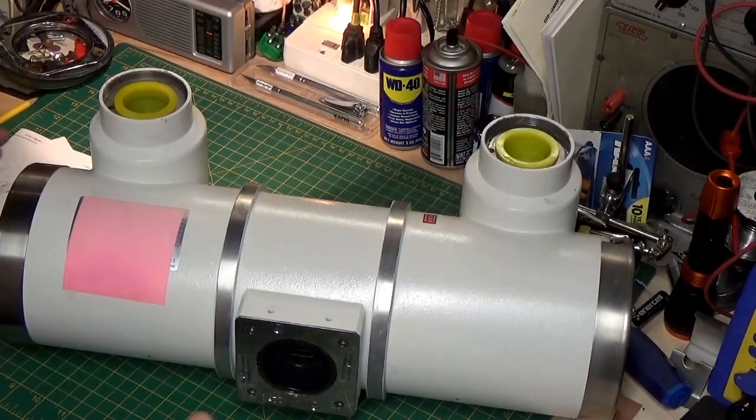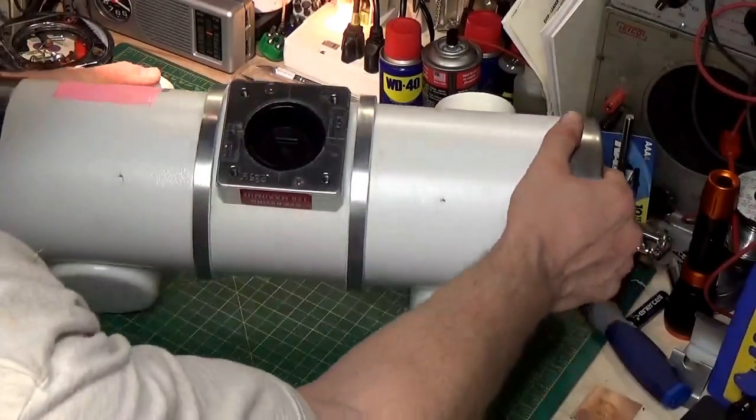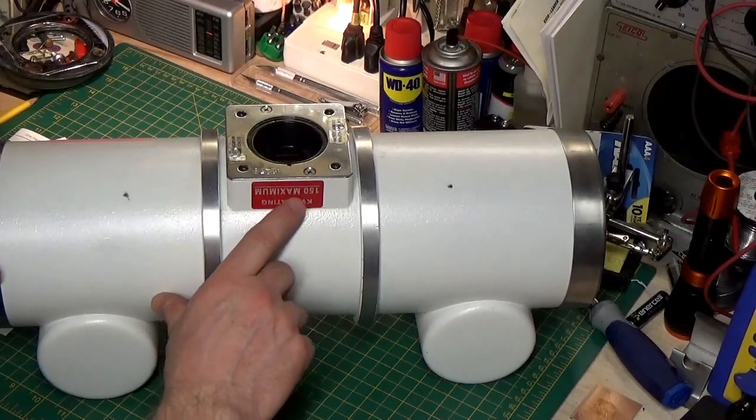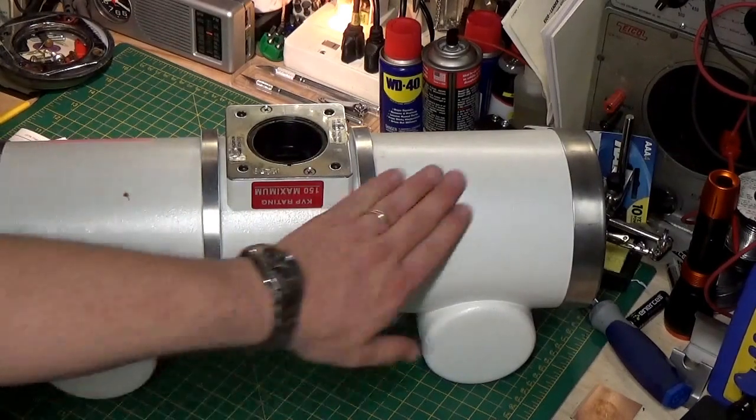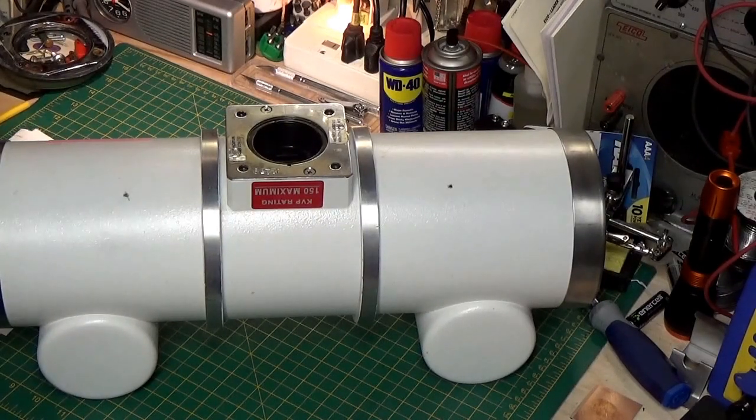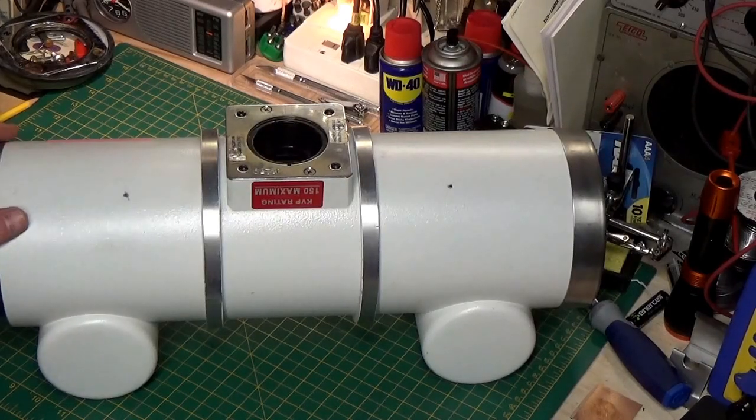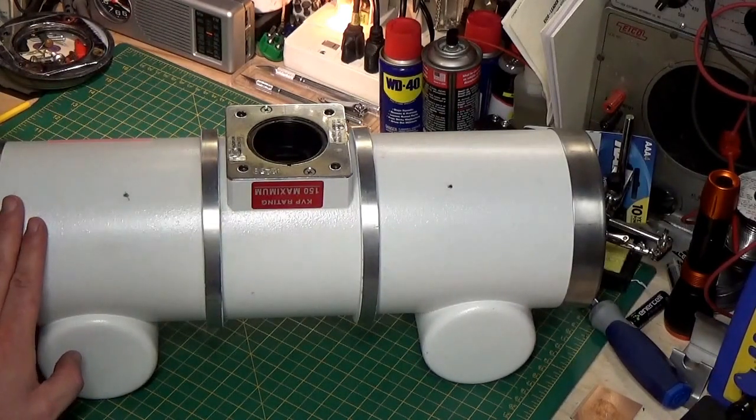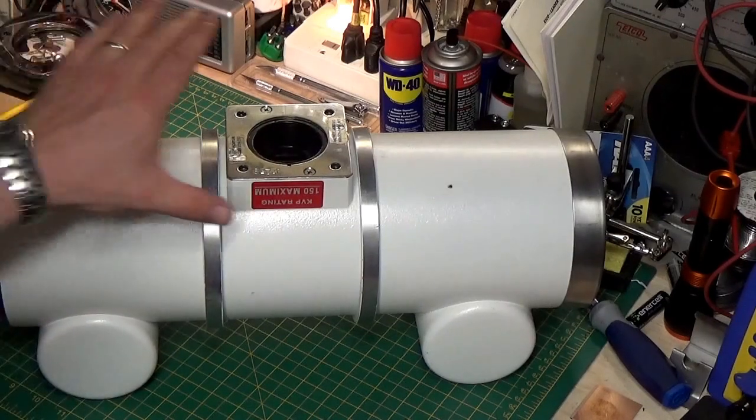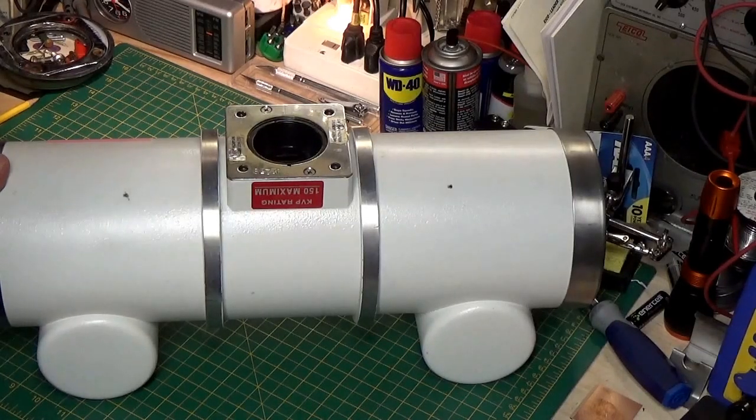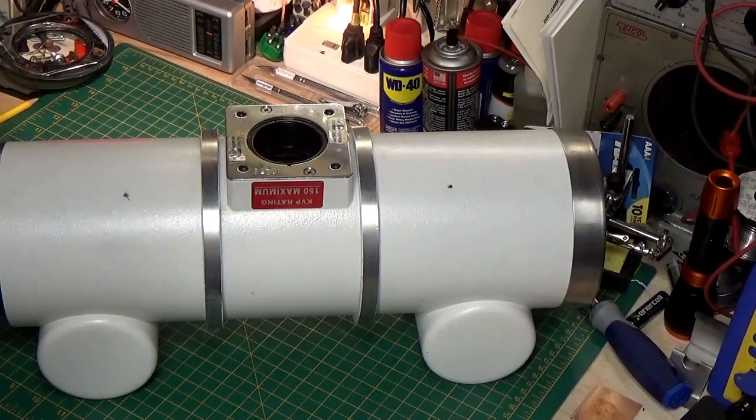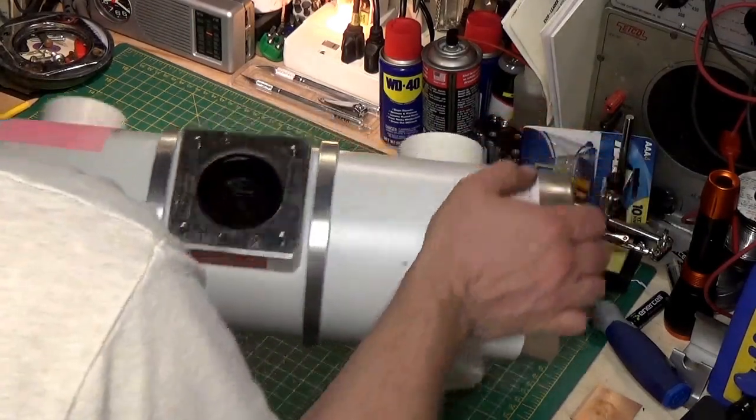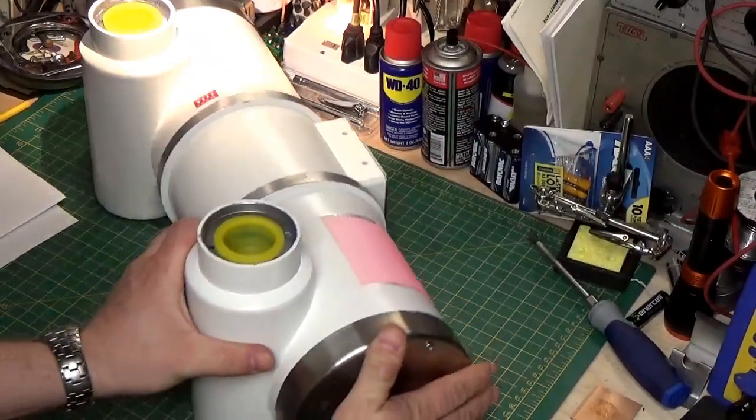Now, I'm going to show you something you may not believe, but it's true. It might be upside down, but... KVP rating, 150 maximum. Yes, you're seeing it. This x-ray tube can handle 150,000 volts. And you might think, well, it's like a neon sign, real low amperage. Well, I got news for you. These tubes, this one here, at 150,000 volts, can easily handle 300 milliamps, or a third of an amp. And the bigger tubes that you see on CAT scanners, and big equipment like that, can handle that 150,000 at over one amp. That's a lot of power. 150 kilowatts. So, this is not a toy. And the equipment that runs it, is definitely not a toy. Very dangerous.